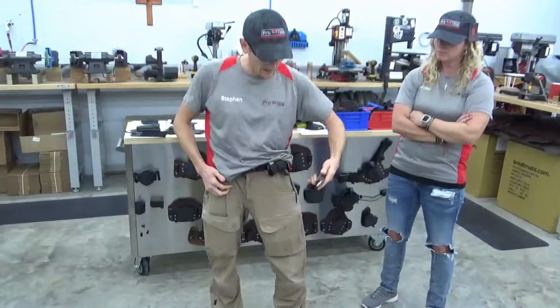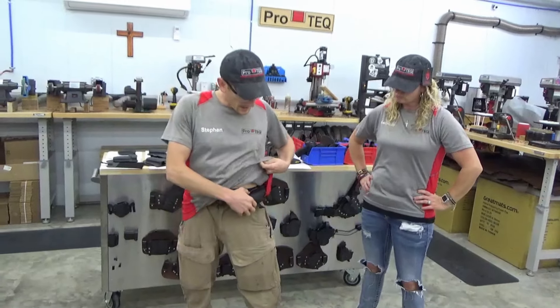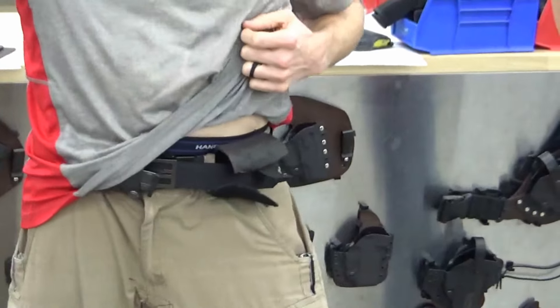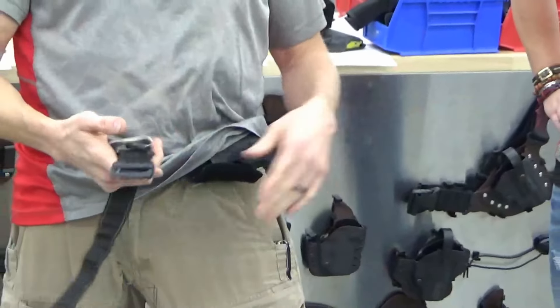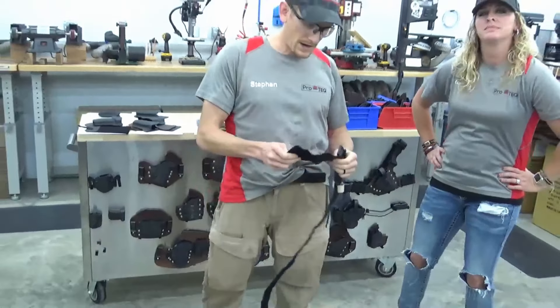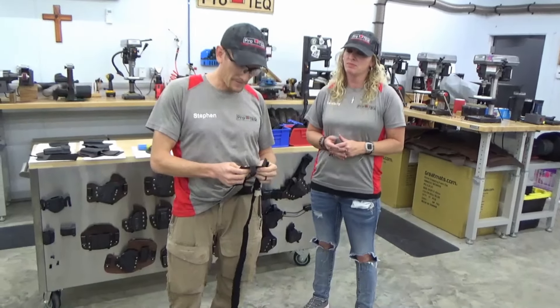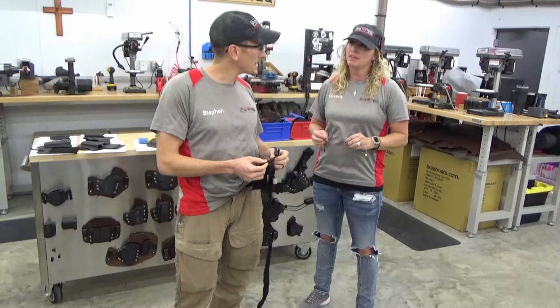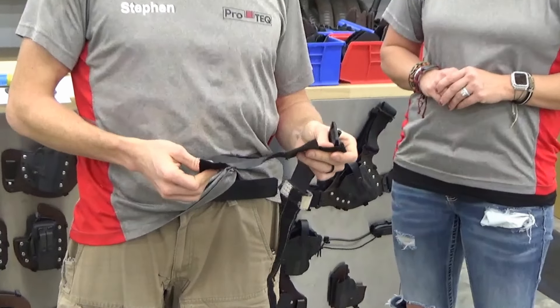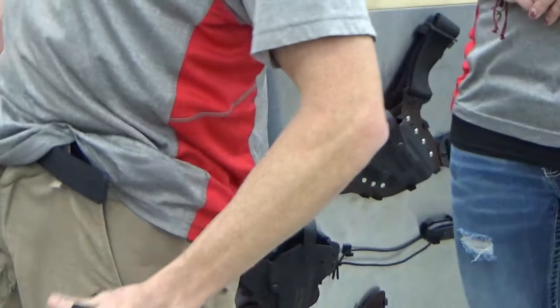I've got an H-Mag on here too — that's our horizontal magazine pouch that we make. But I can grab it with one hand pulling the tab up, releasing it, grabbing the tourniquet, or I can grab it with two hands. We bifold them and put them on there. This one I've been wearing for almost three years. Catherine from the training academy, she and I and the rest of the academy and our instructing staff all put our heads together and developed this together. It's just a wonderful way to carry a tourniquet.